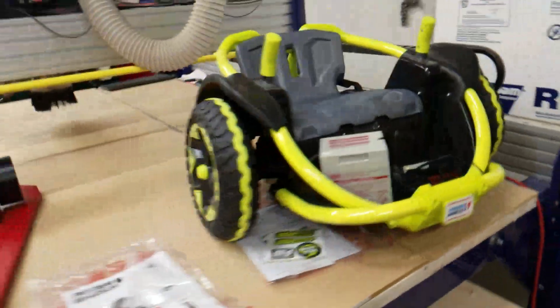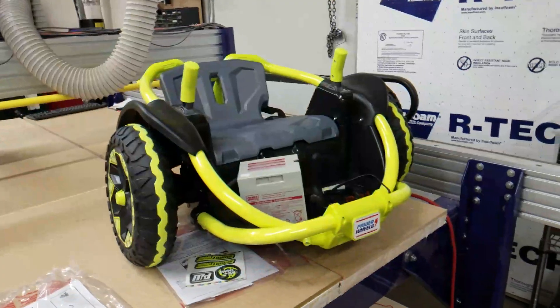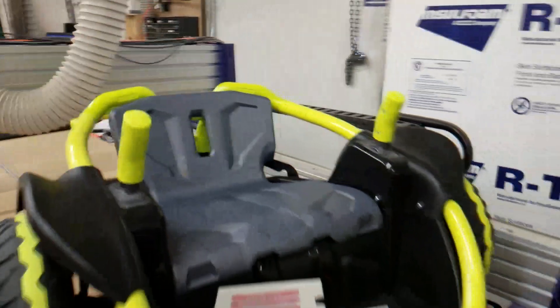Hey, I'm Brady, I'm the fabricator here at Southwest Human Development's Adapt Shop, and I'm just going to show you a little project we've been working on recently. You may have heard of the Power Wheels or Go Baby Go — it got a lot of traction with ride-on toys. Up front we have the Power Wheels Wild Thing, which has two motors, one on each wheel, and you use joysticks to push forward and back to drive the unit.